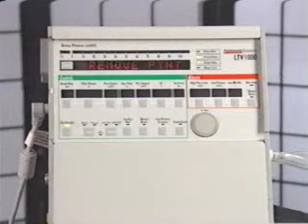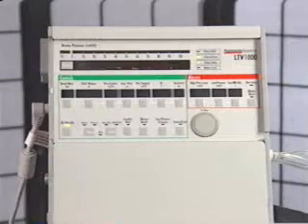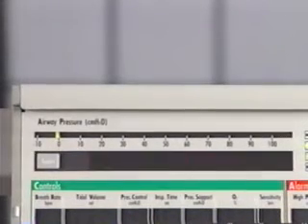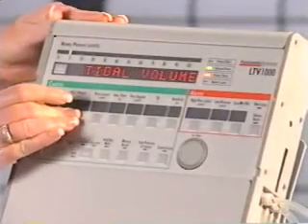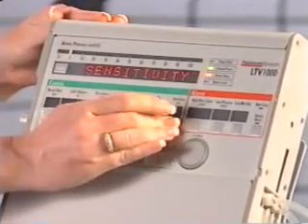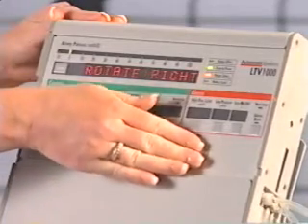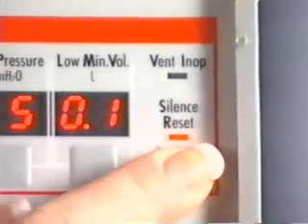The Remove Patient Alarm occurs when the ventilator is powered up in the ventilator checkout or ventilator maintenance modes, to remind you to remove the patient from the ventilator before proceeding, since the ventilator does not deliver gas during these tests. The ventilator checkout mode is used to check for correct operation of the displays and controls and to check the patient circuit for leaks. The ventilator maintenance mode is used by technical personnel to perform maintenance or calibration. To reset the Remove Patient Alarm, press the Alarm Silence button twice.